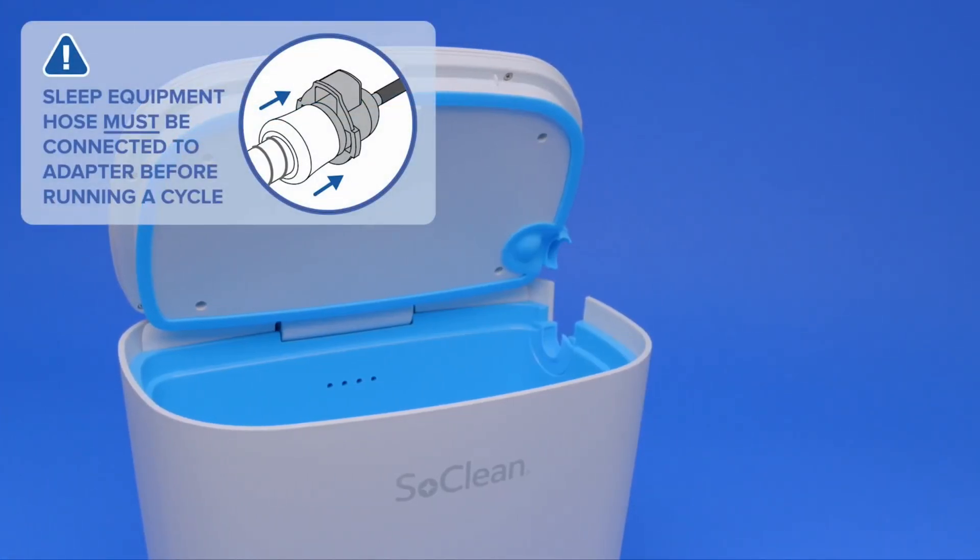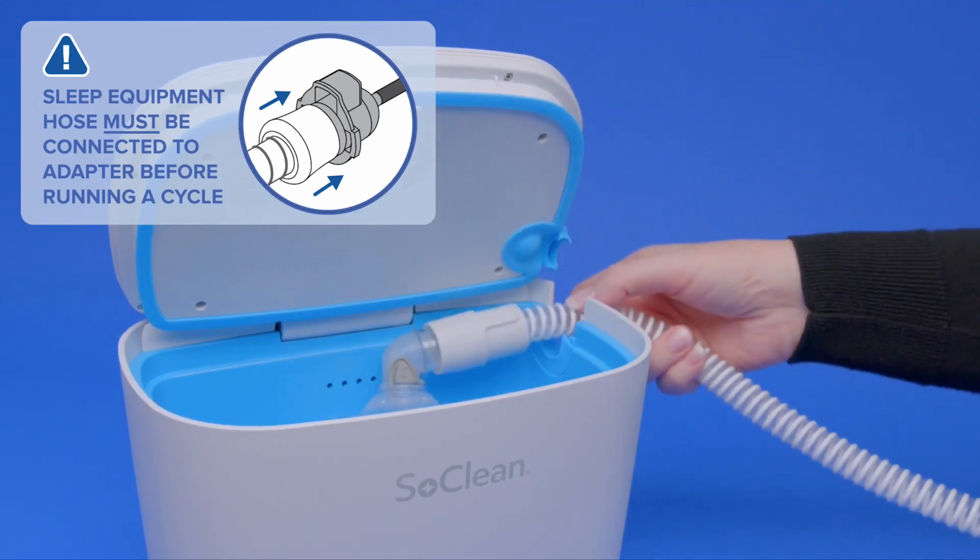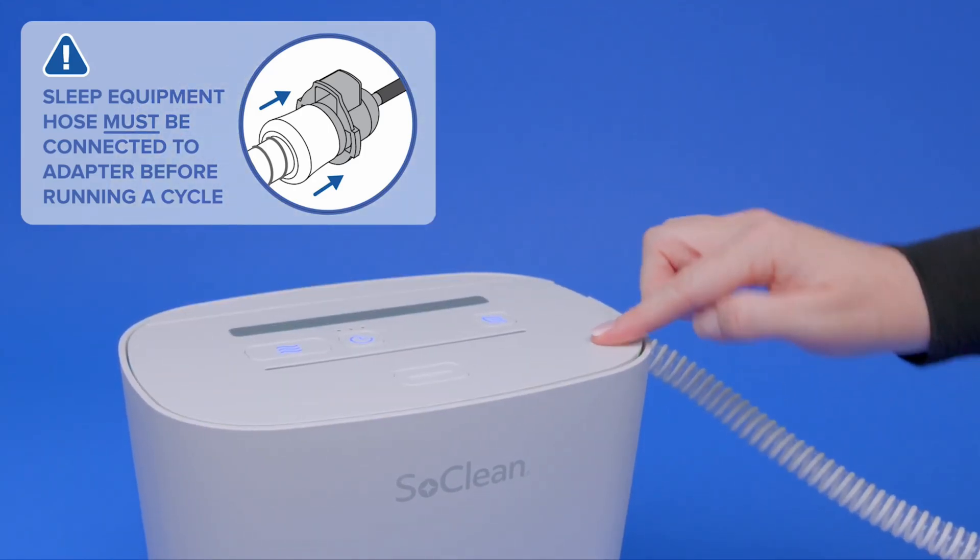You are now ready to use your SoClean. Place the mask into the SoClean chamber and run the maintenance cycle.